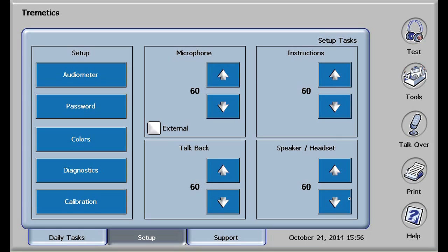Your Tremetrics RA800 audiometer is now set up for testing. The information is available in the operator's guide, or by touching help located on the right of most screens. Additional information is also available on the Tremetrics website, www.tremetrics.com, or your local Tremetrics representative. Thank you for your attention and have a great day.